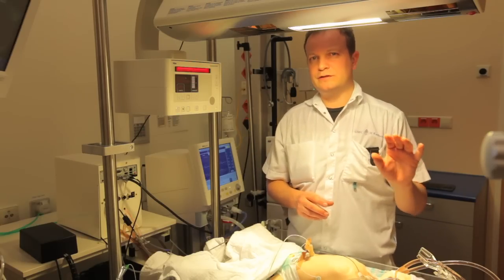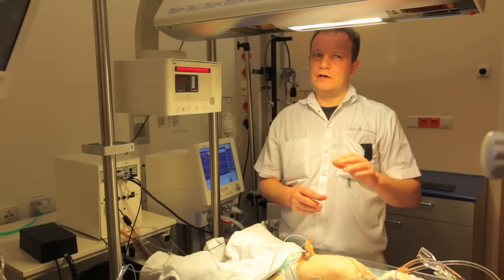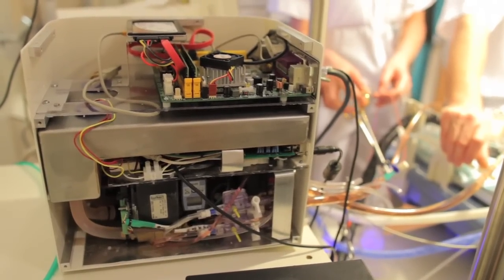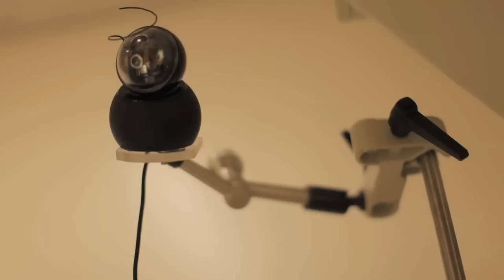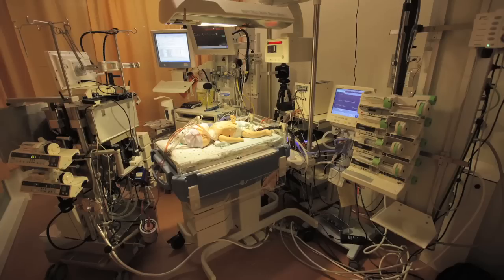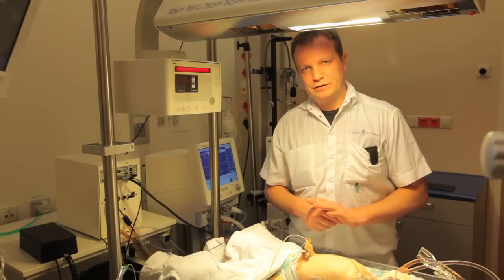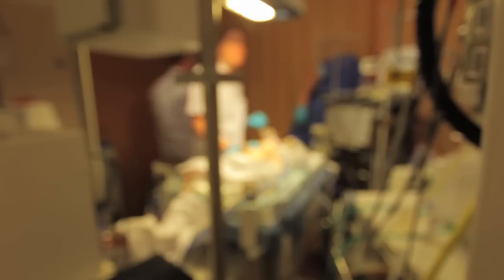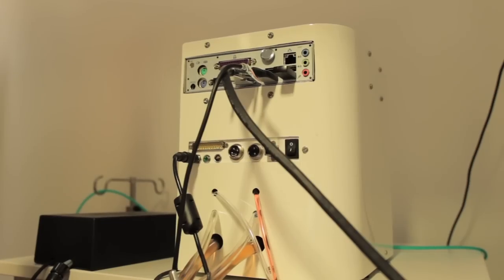You can divide those into two kinds of emergencies: technical ECMO machine-related emergencies and patient-related emergencies — like tubing failure or pump failure in ECMO-related emergencies, and cardiac tamponade or hemothorax in patient-related conditions. So we made a list of about 20 emergencies which our simulator should be able to simulate. During the development process, we added features like wireless control, so we didn't have to be present in the room to control the simulator. We use this simulator in all aspects of our simulation program now.